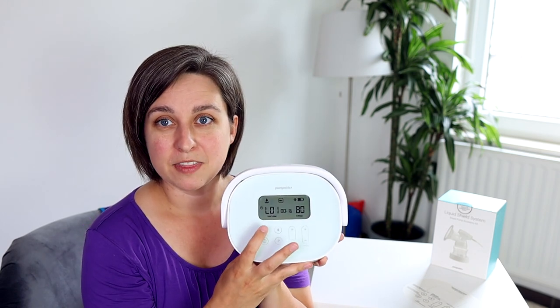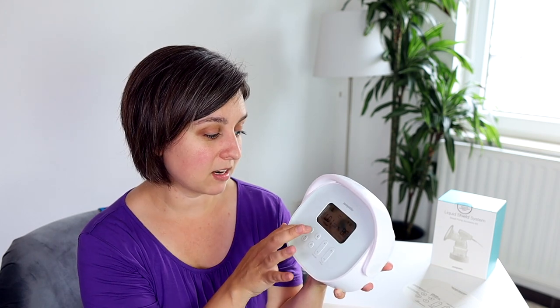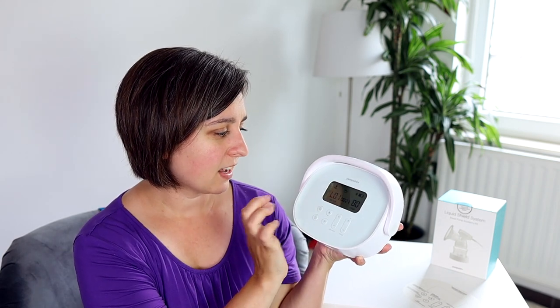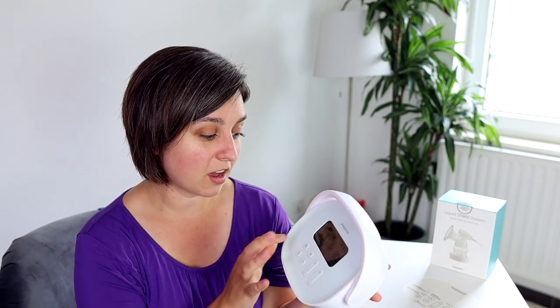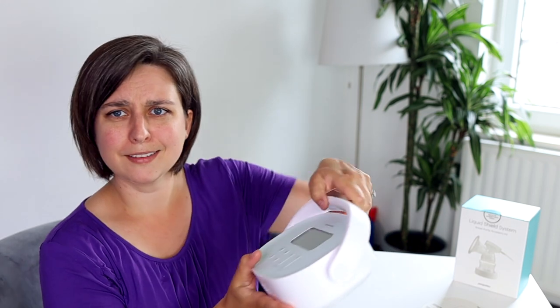You can tap the power button for a pause if you need a break, and then resume. It's timing the pump, which is great — the battery life indicator tells you what mode you're in. There's a lot you can do on that pump and programming is super easy. So let's look at a couple extra specs — I've got the manual here and I'll tell you if that lines up with what we just saw.